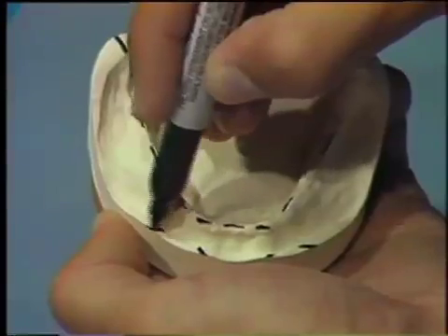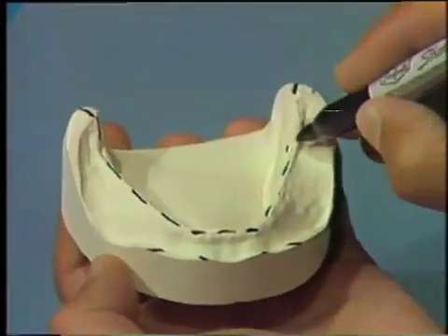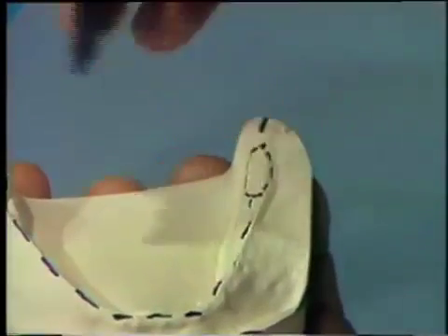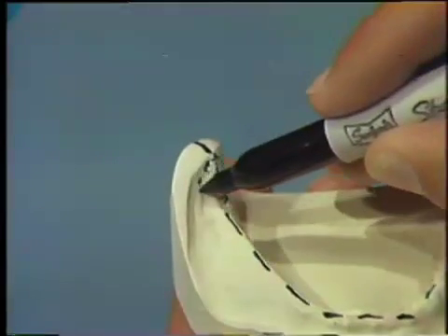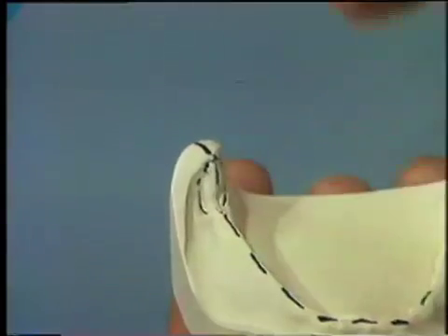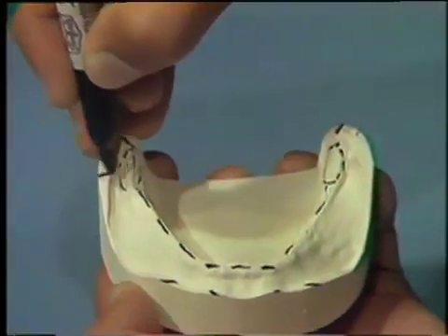When the tray is in place on the diagnostic cast, these lines will serve as reference points for centering the wax occlusal rim. Mark the top of the retromolar pad on each side of the cast, and place another mark one to two millimeters below this mark on each side, and extend these lower marks onto the landing areas.